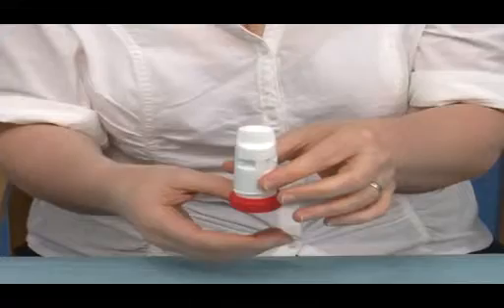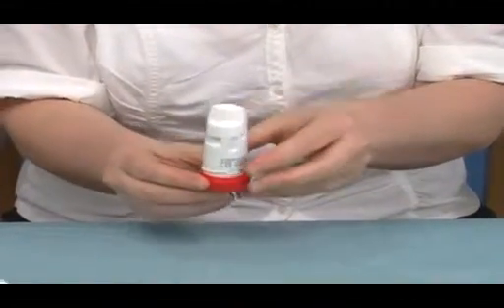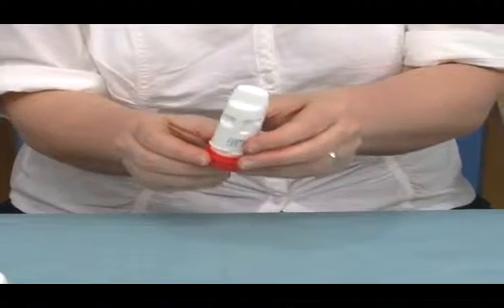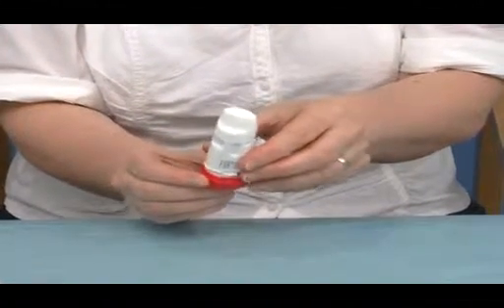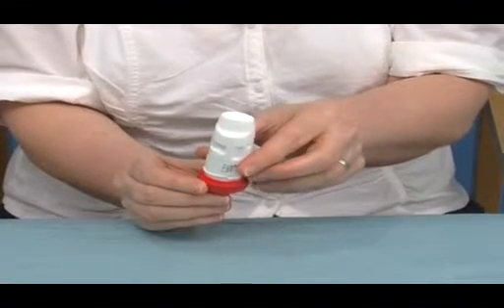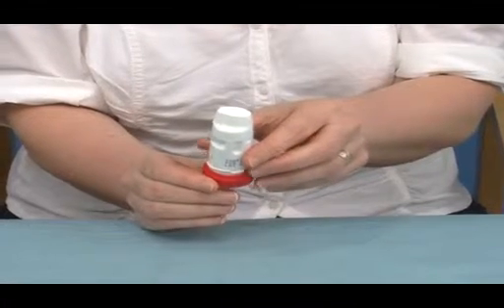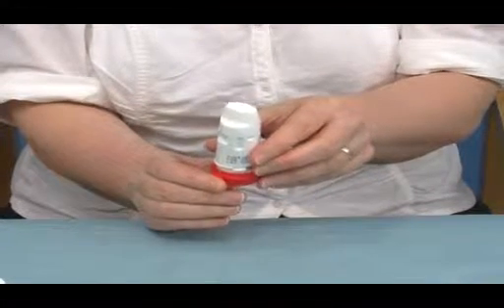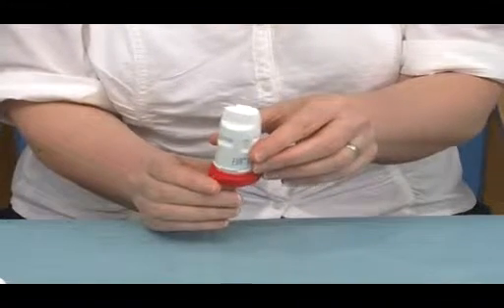The patients would take a breath in, breathe out fully, and then insert the inhaler into their mouth, taking a deep breath in. Once they've taken their breath in, they would remove the inhaler, close their mouth and count up to about 10 seconds if this is possible. For some chronic lung conditions this is not feasible, so they should hold their breath for as long as they feel comfortable. To take a second puff, they would start the process again.